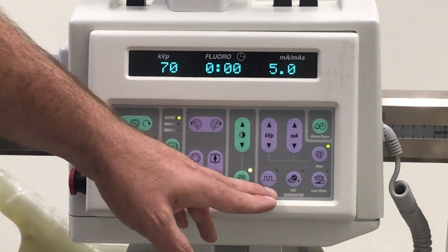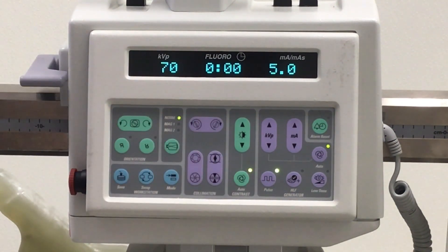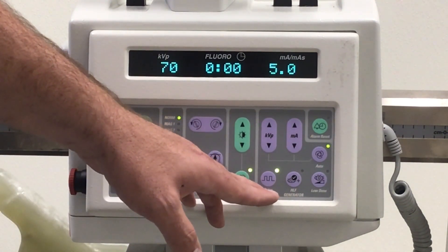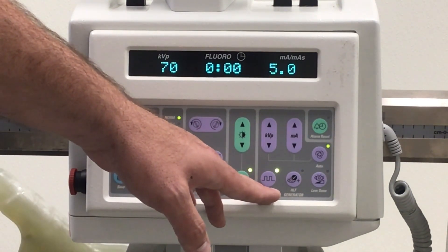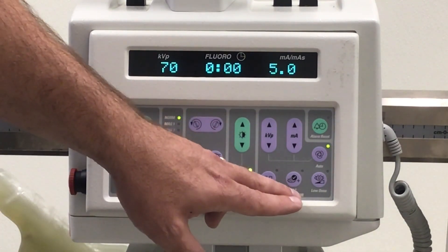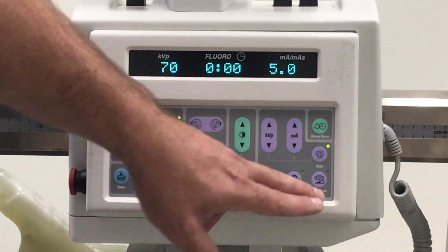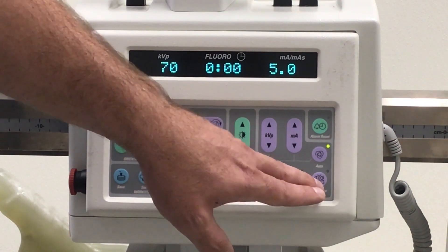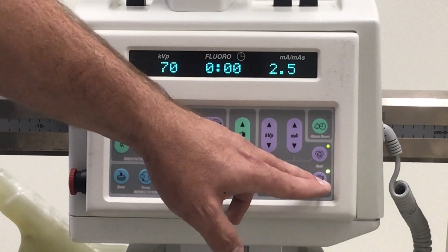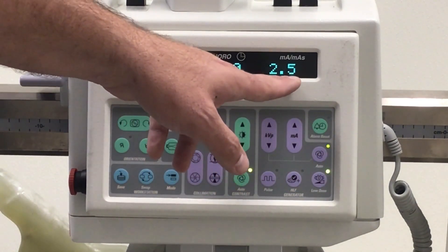Here we have our pulse button. A simple press of the pulse button will activate your pulse. This is one of our dose reduction options. We also have low dose — again, just a simple push of one button. You can see that low dose actually drops your MA by half.